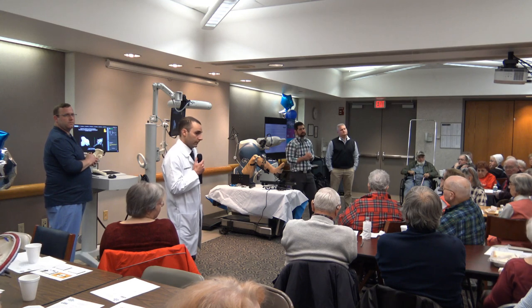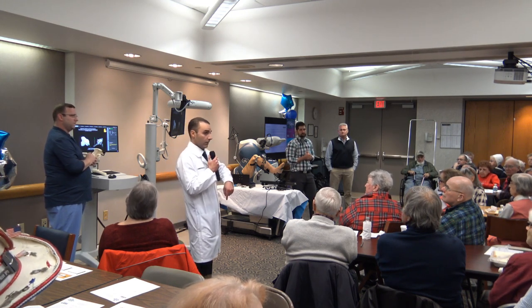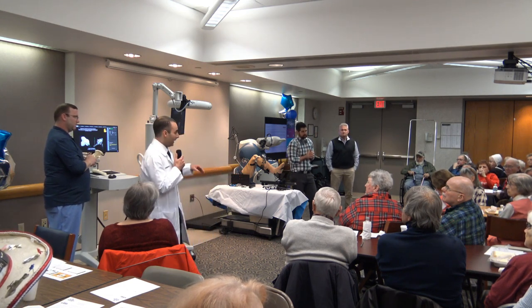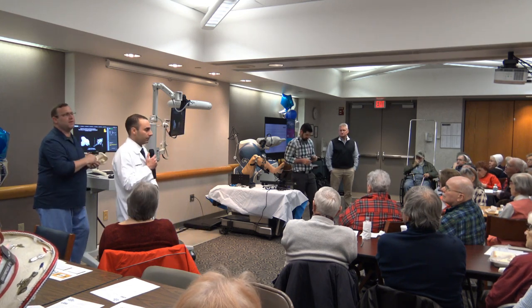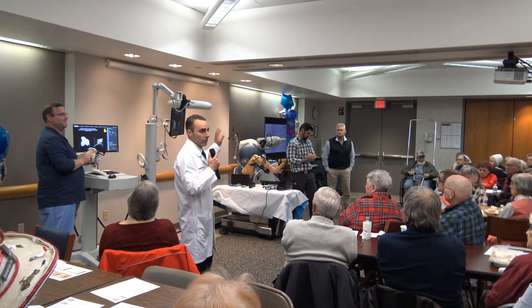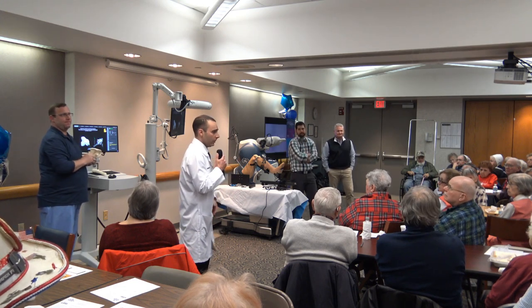What about the implants and equipment? At this hospital, we use a Stryker implant — that is really the only implant compatible with the MAKO system. Stryker is the only implant that can be used with this robot, and that's actually what we used before this robot came anyway.